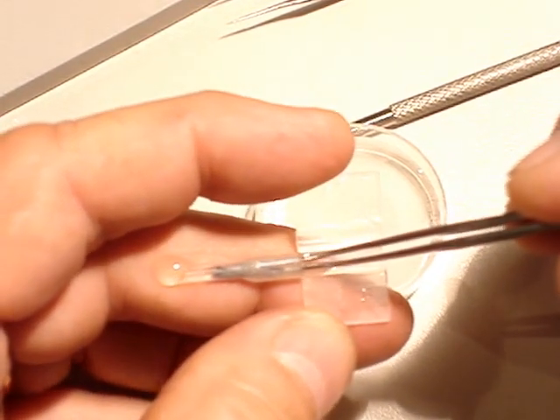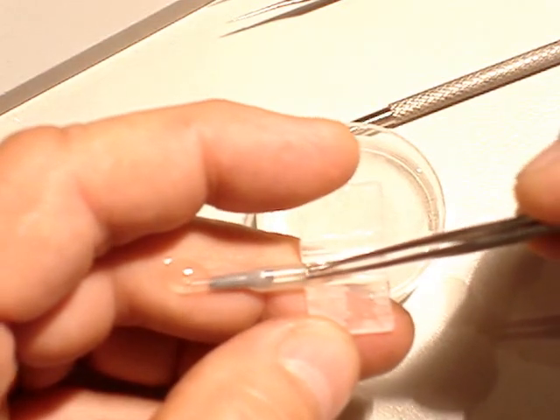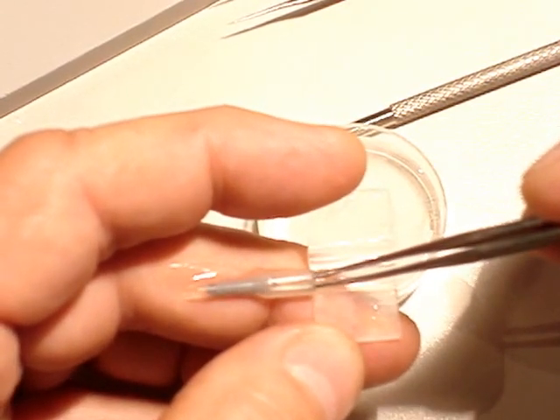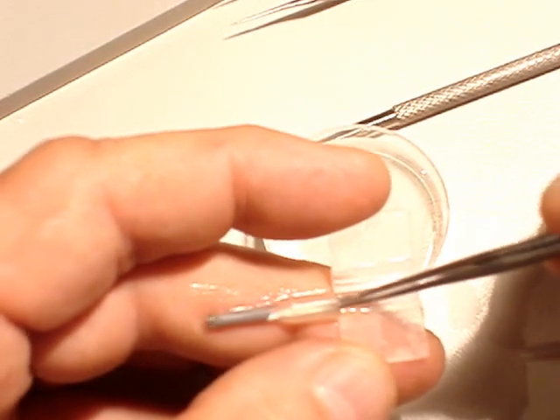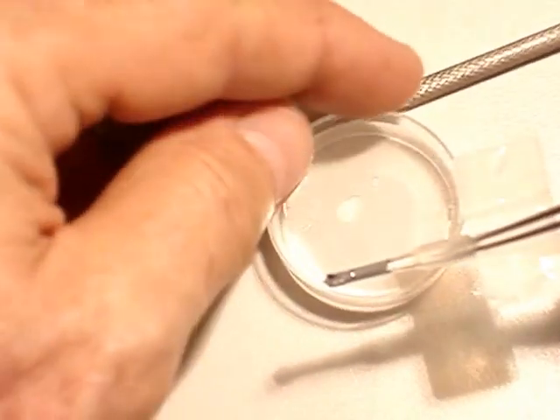Then make sure that the implant is very much there. You see these forceps can even place the implant into the eye if you want to.